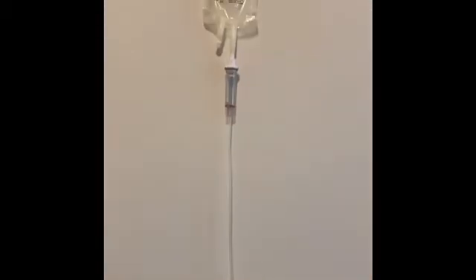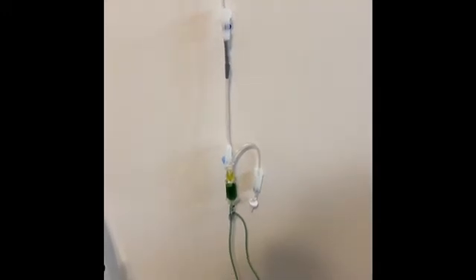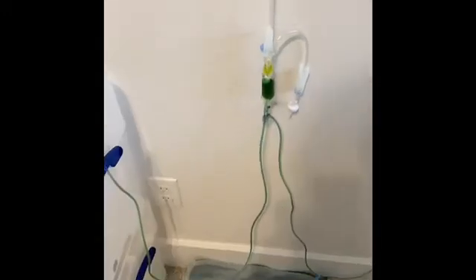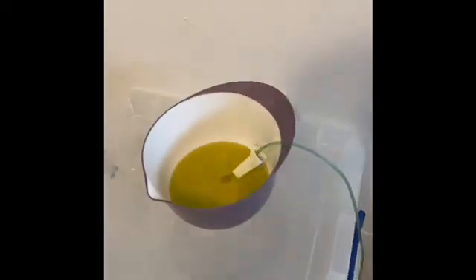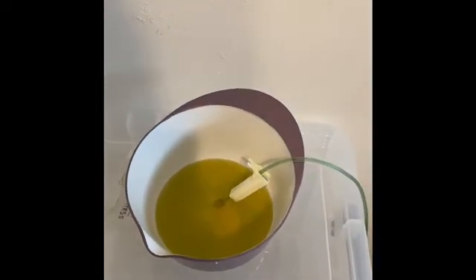The tubing above runs up to an empty bag of saline. This does not need to be long — it can be just an inch above the reservoir itself, and that will enable collection of the air. The rest of the system flows through here into an outflow track. You do not need the roller at this point; it is simply here because of the tubing setup.